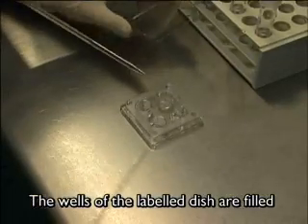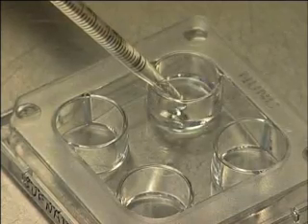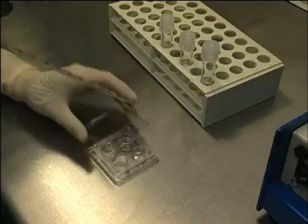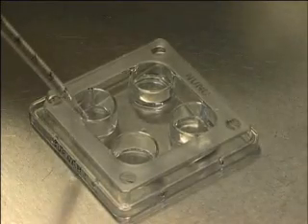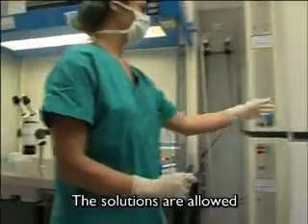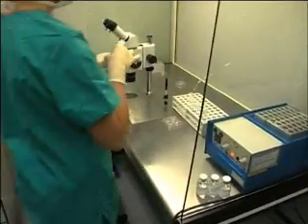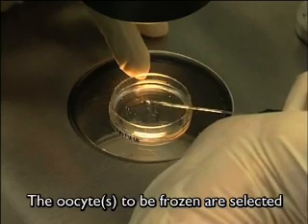The wells of the labeled dish are filled with 0.4 milliliters of the freezing solutions. The solutions are allowed to equilibrate at room temperature. The oocytes to be frozen are selected.